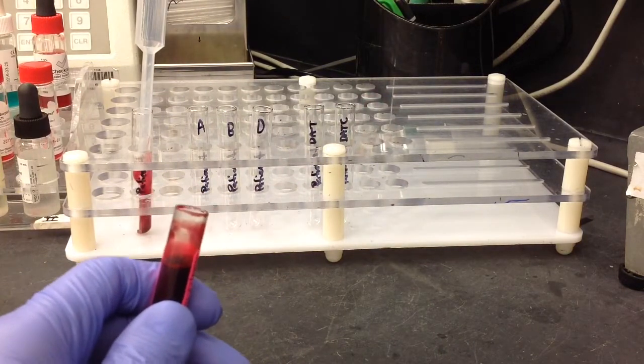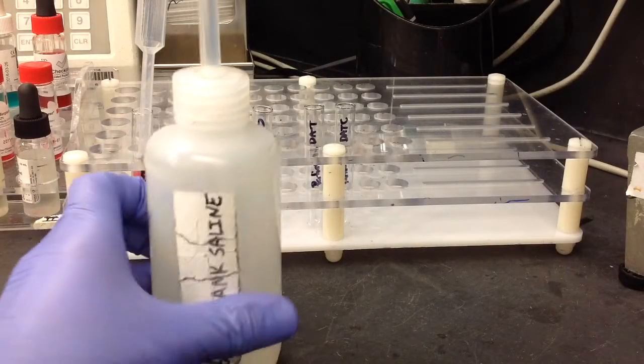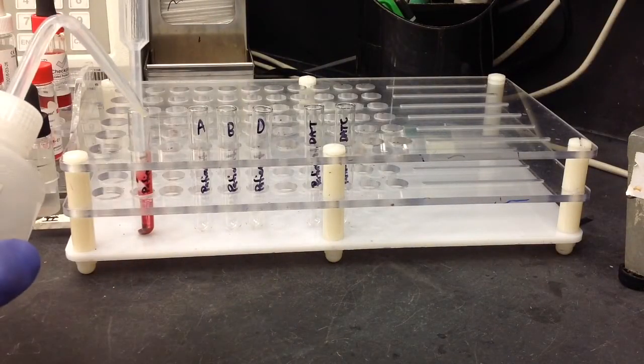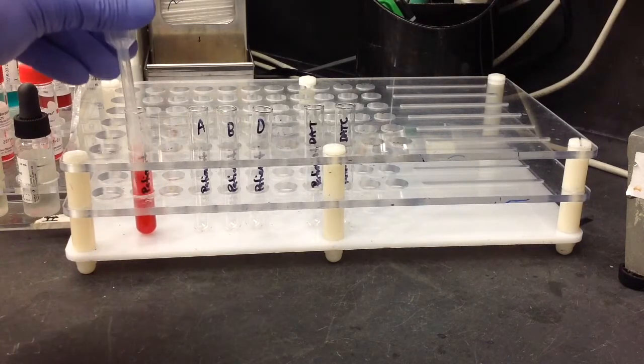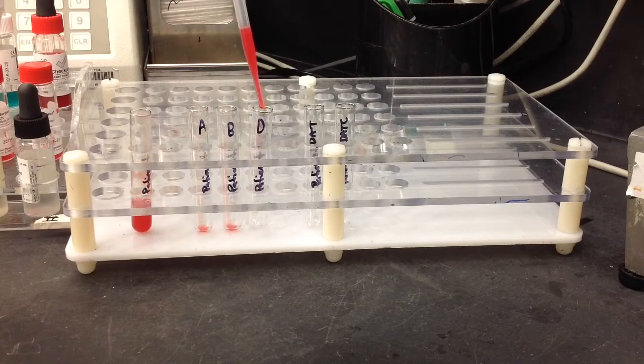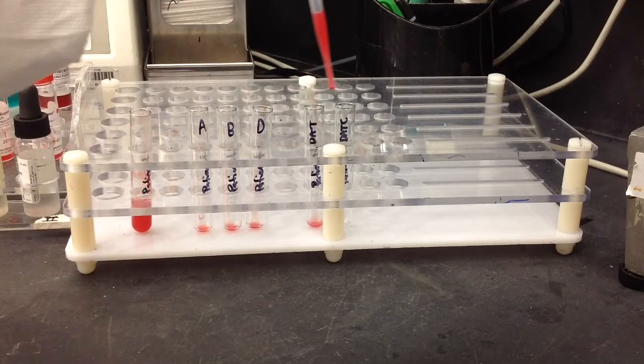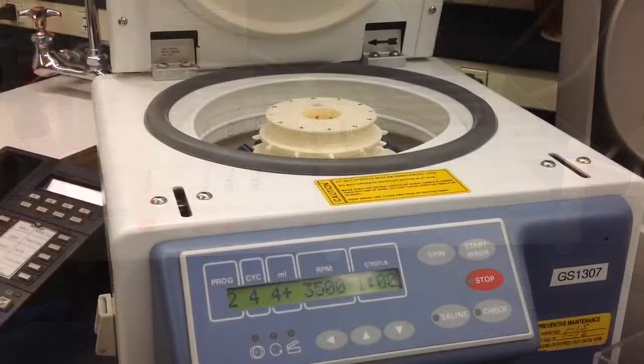I'm making a cell suspension before I add the specimen to the tubes that I have labeled here with my physiological saline, 3% approximately. I'm not sure that everybody does this, but this is how I typically do it. Some people might wash the cells before they distribute them. And it's just going to be one drop of cells into each one of the tubes.